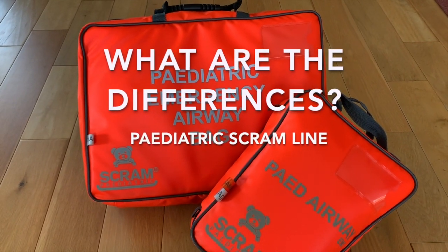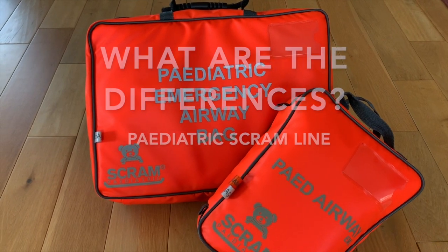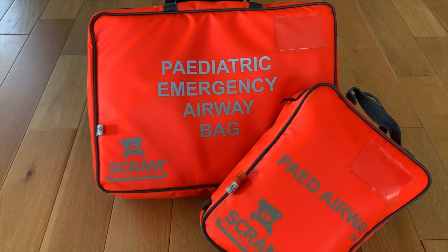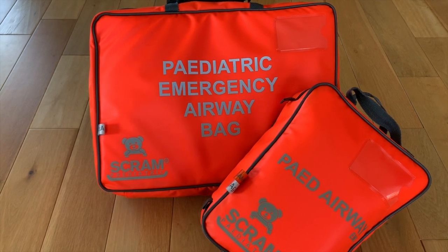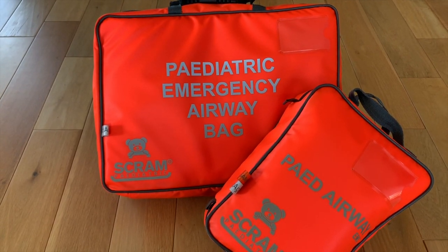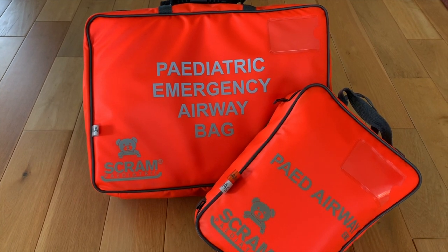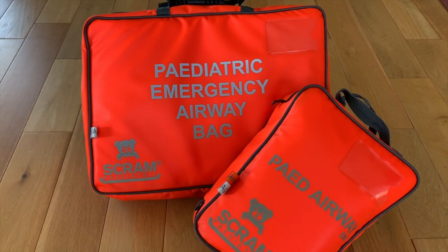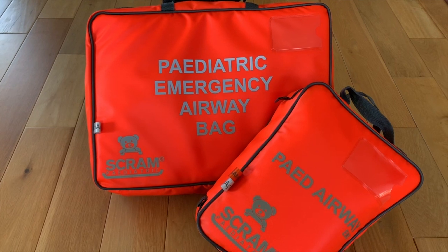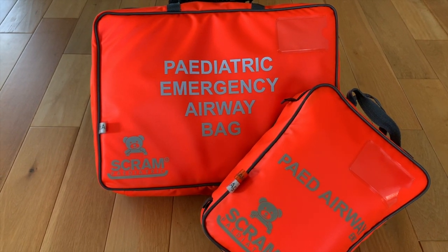G'day folks, Paul Swinton here. So what are the differences between the two versions of the Pediatric Scram line? In this video I'm going to run through a brief overview of the differences, get into the bags, and give an example of how each of the bags could be stocked — that may help you decide which one is best suited for your system.